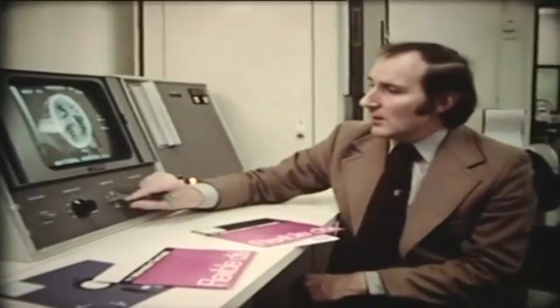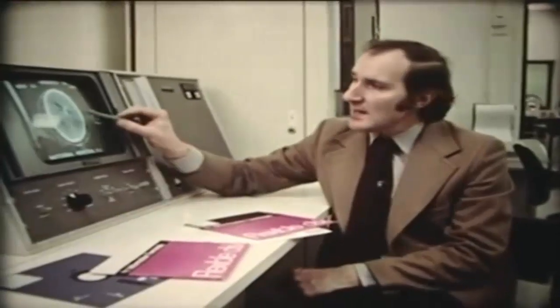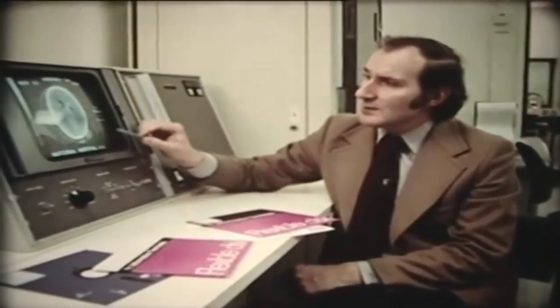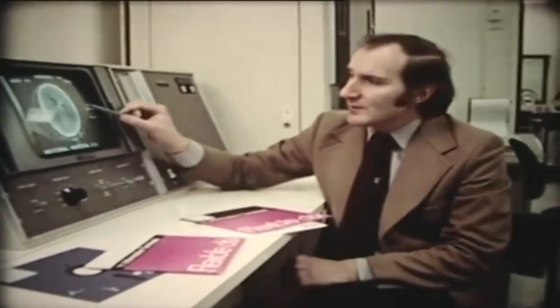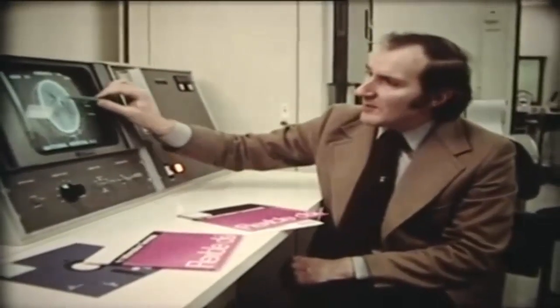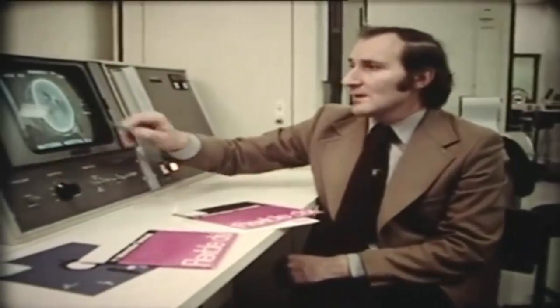We can see on these pictures that there is a star effect — lines radiating from the position of the bullet. This is because the bullet, which is very dense as it is made of lead, produces artifacts in the computer. It is as though the computer can't believe that the bullet is as dense as it really is, and so it attributes some of its density to the surrounding brain, producing an effect that looks rather like the moment of impact of the bullet upon the brain.